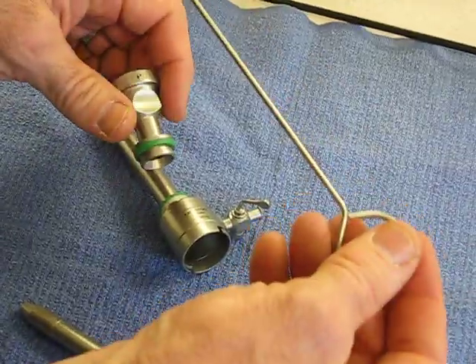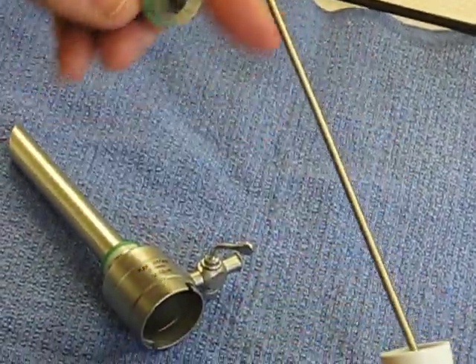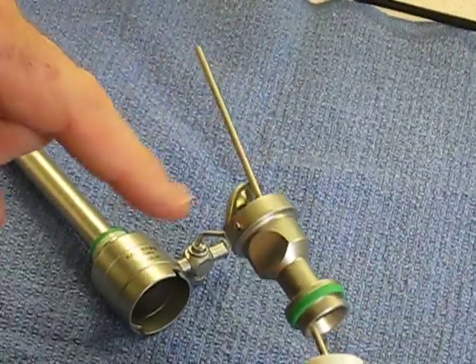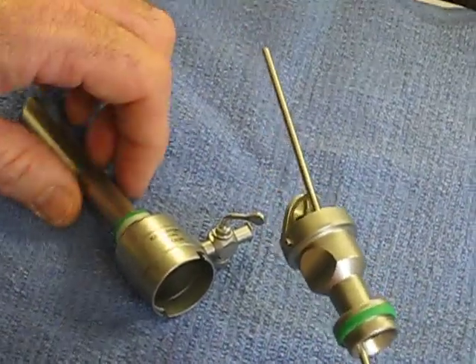This pin is designed so that you can put these things in order of assembly. It also keeps the trapdoor open so that when it's soaking, the Enzymatic Cleaner can get inside the trapdoor and work on the organic matter.